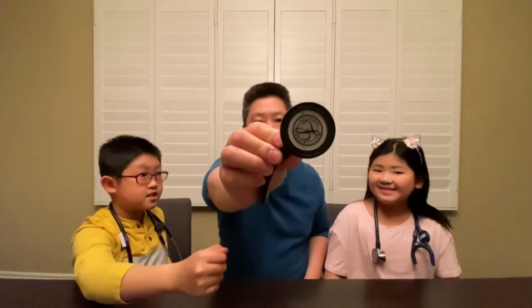What is a stethoscope? A stethoscope is an extension of the ear. What does extension mean? It means it can reach farther out. So what do I do with this? You put it on your ear and then you extend it. And I extend to do what? To listen — to your heartbeat.